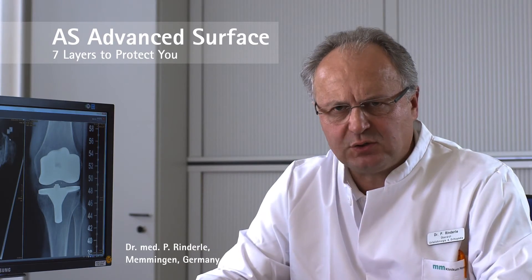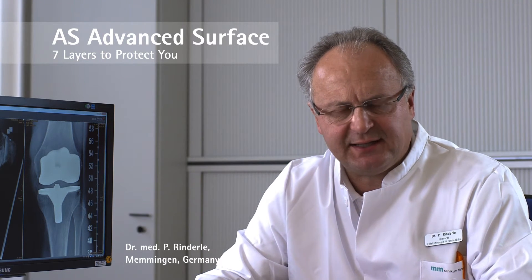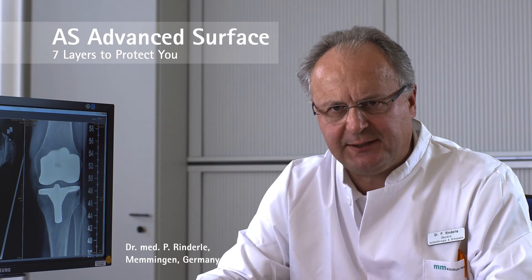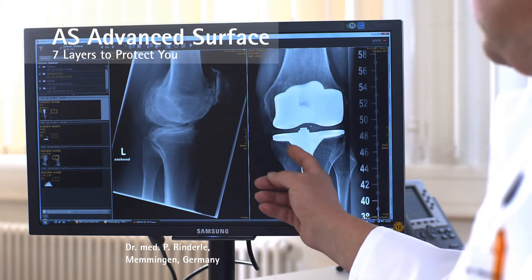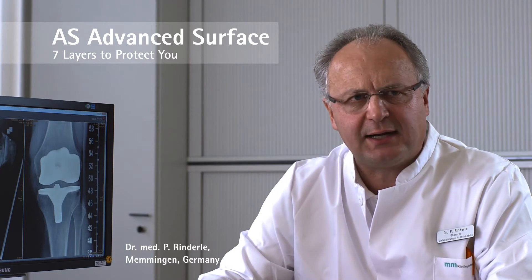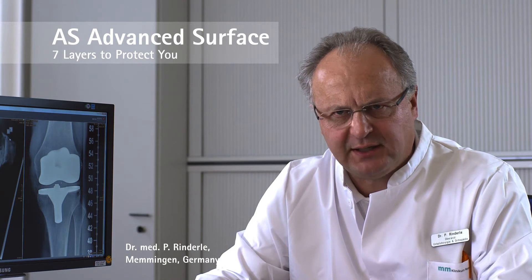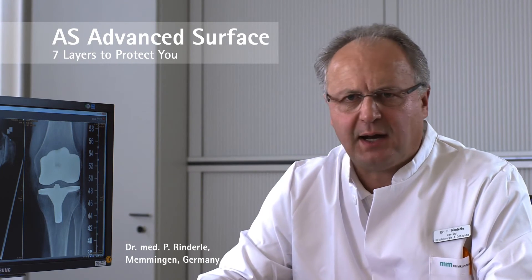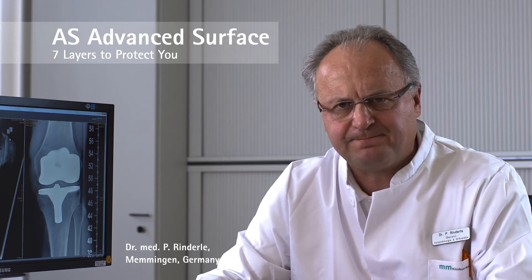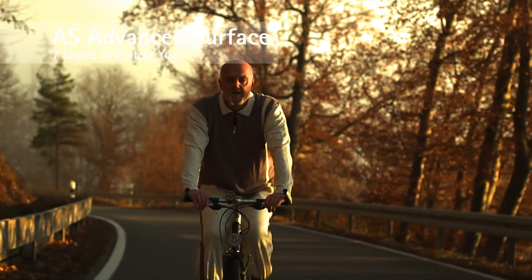In follow-up examinations at our hospital, we found that almost one in three patients experienced a hypersensitivity to metal. For this reason, we only implant ceramicized surface replacements for both our unicompartmental and, as in this case, our total knee replacements. This has been our policy for a number of years now, and we have not identified any disadvantages to date.